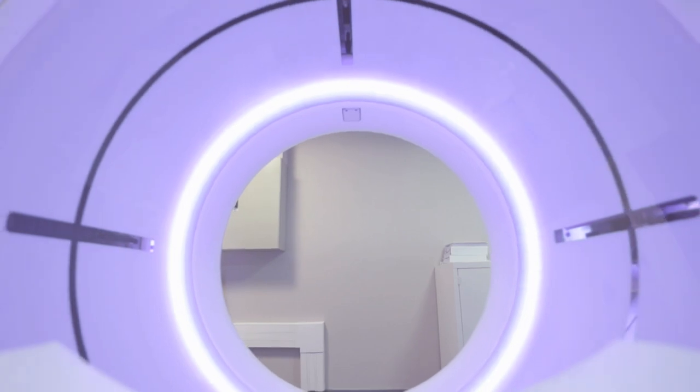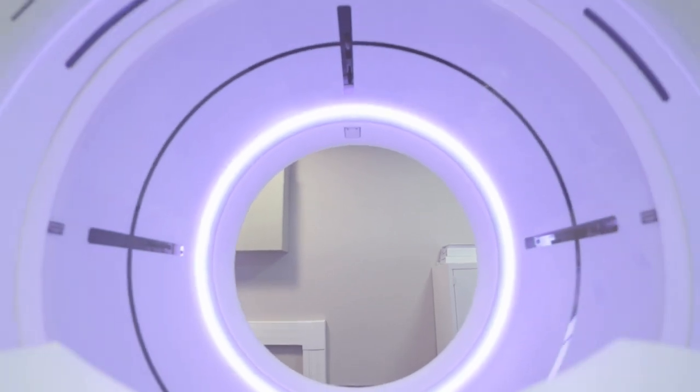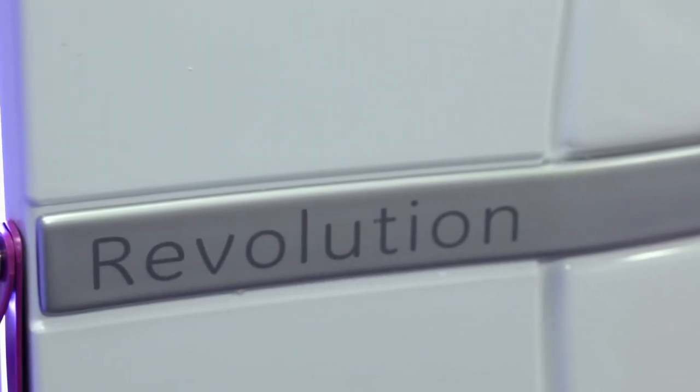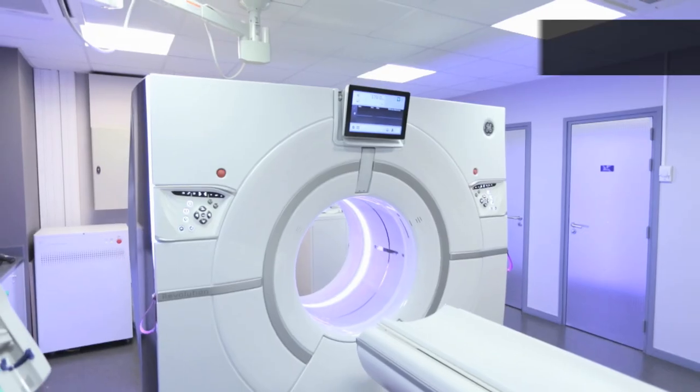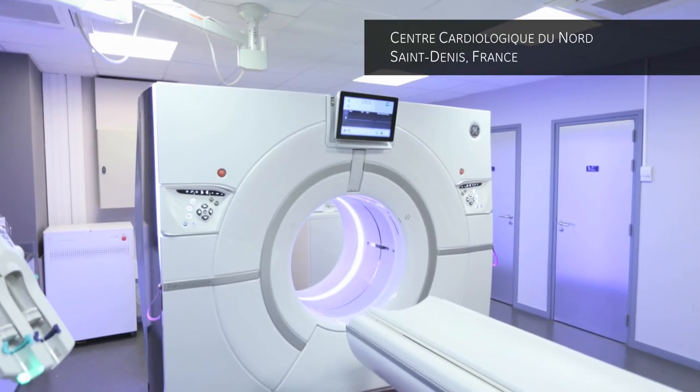Revolution CT is a breakthrough that puts in your hands uncompromised technology, coverage, spatial resolution, temporal resolution, and dose performance, all in one CT.